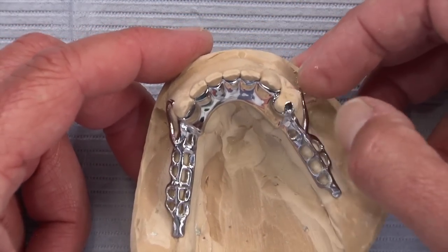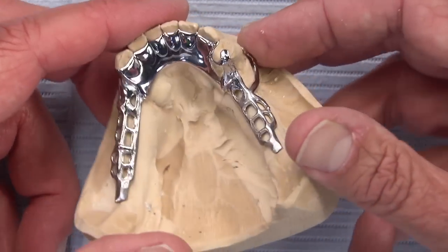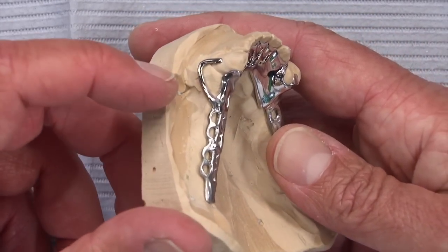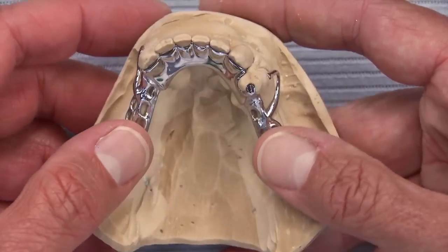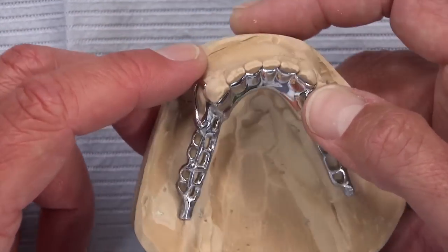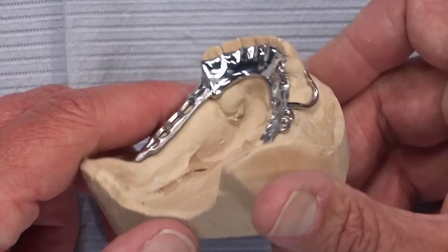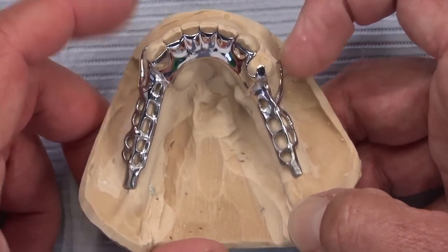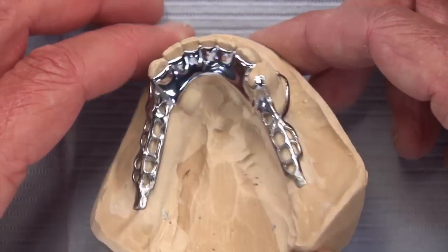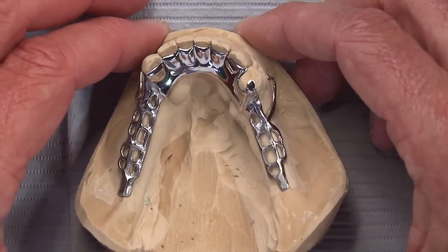Because we have a nice occlusal rest making this tooth-borne and a nice conservative I-bar that's going to be very kind to the tooth when the patient functions on the back — compared to a circumferential clasp, it disengages as it rotates toward the distal. Those two I-bars, the cingulum rest prep, and the occlusal rest prep, along with staying away from those Tori, make this a really good solution. The doctor did a lot right with those rest preps to ensure something that should function for the patient for a very long time without pain and without worsening the periodontal situation that could lead to tooth loss.